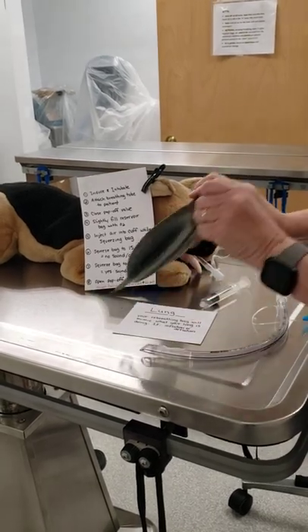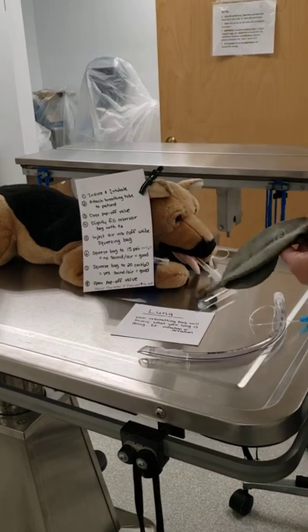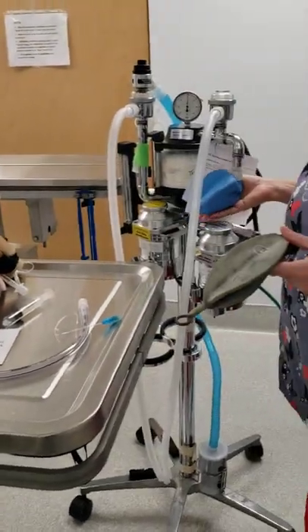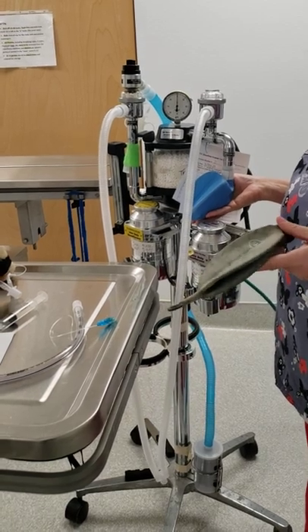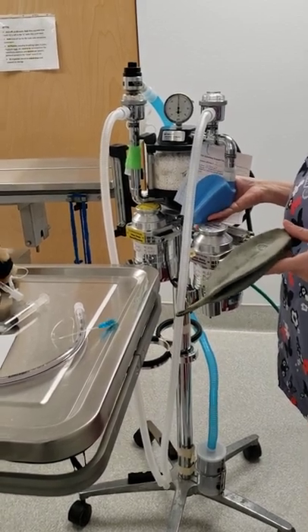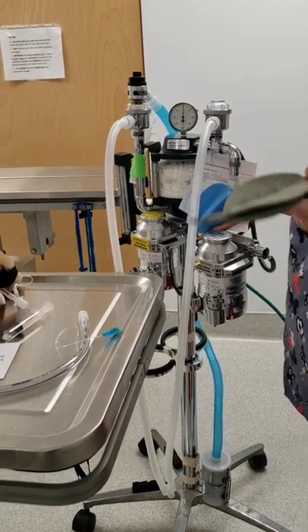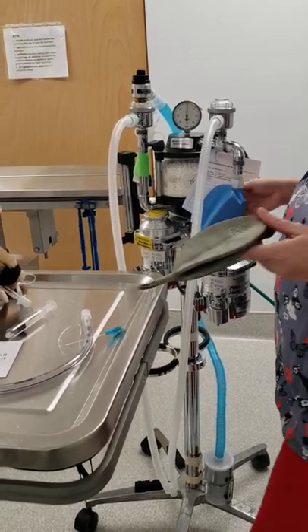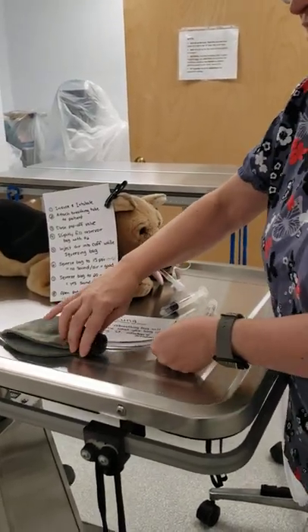What I've done is got myself a lung, or a reservoir bag. If you know anything about anesthetic machines, your reservoir bag on your anesthetic machine mimics what your lungs are doing. So if your reservoir bag is inflated, your lungs are inflated. Likewise, if it's deflated, your lungs are deflated. I'm going to go ahead and insert my endotracheal tube into my lung — in the real world it's in your trachea, but for this purpose I have to put it into the lung.